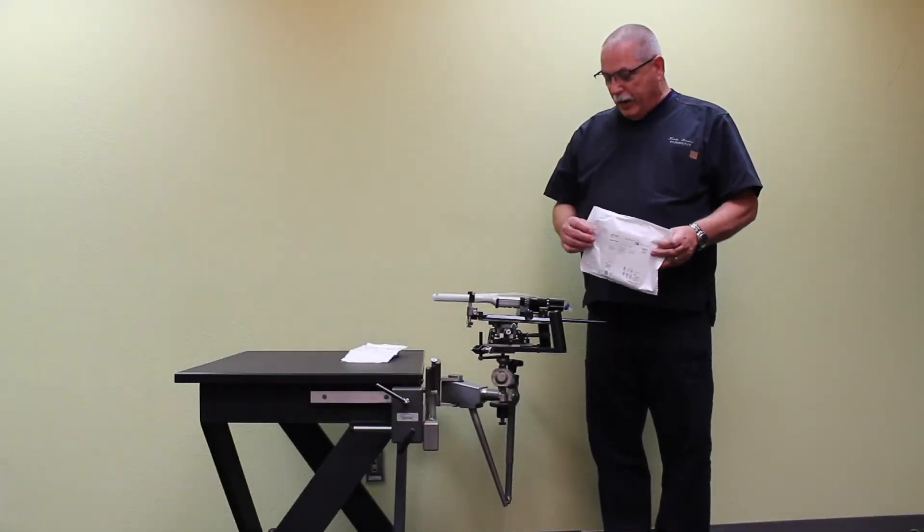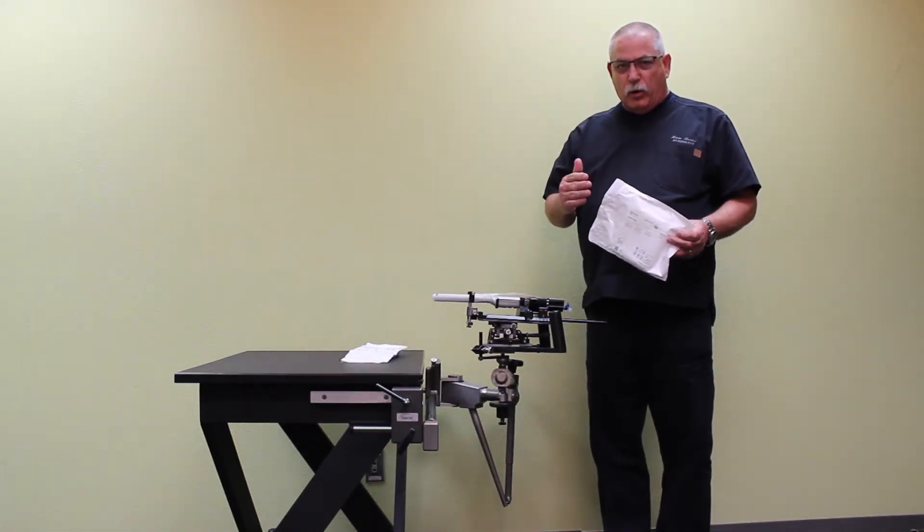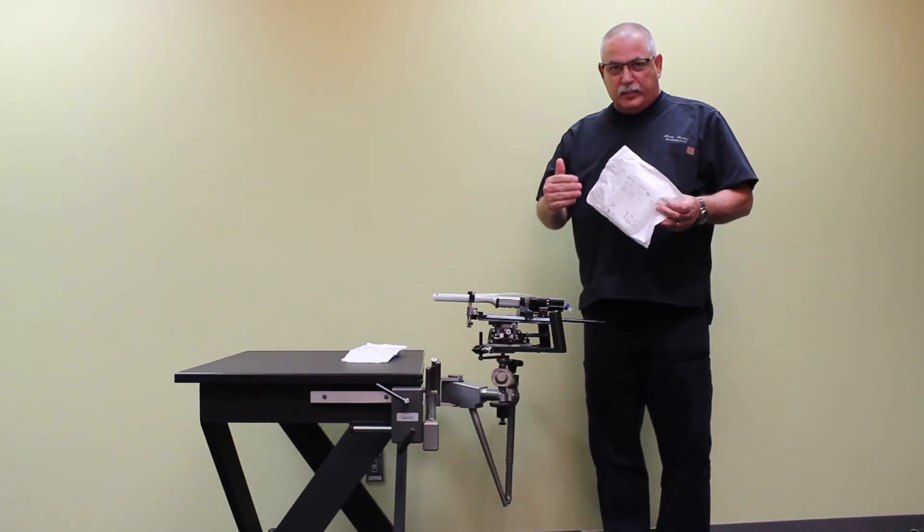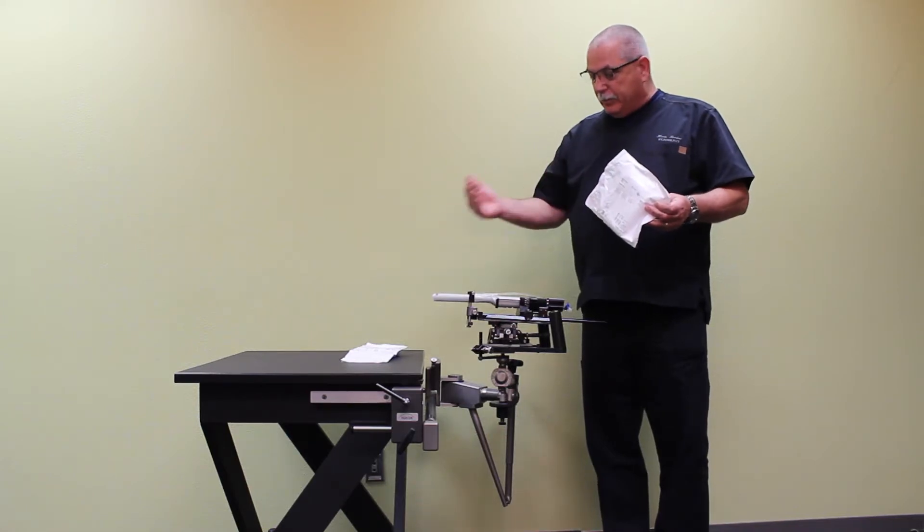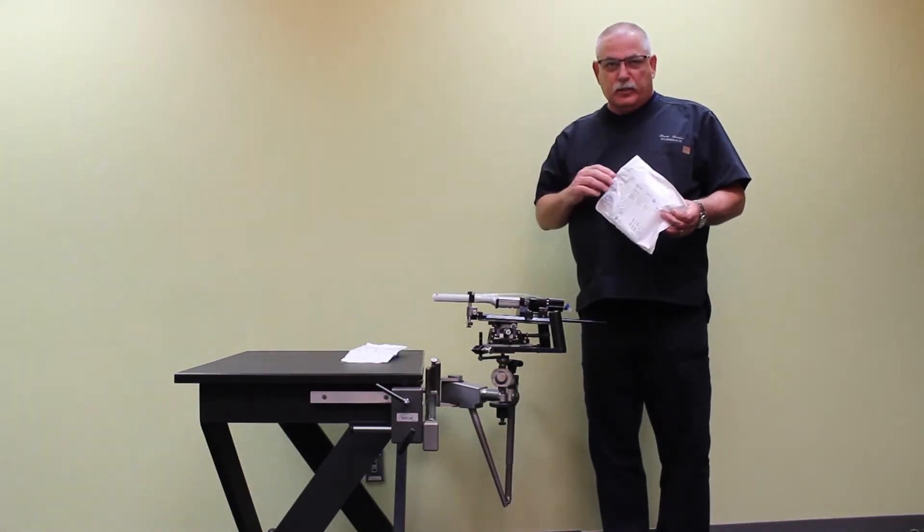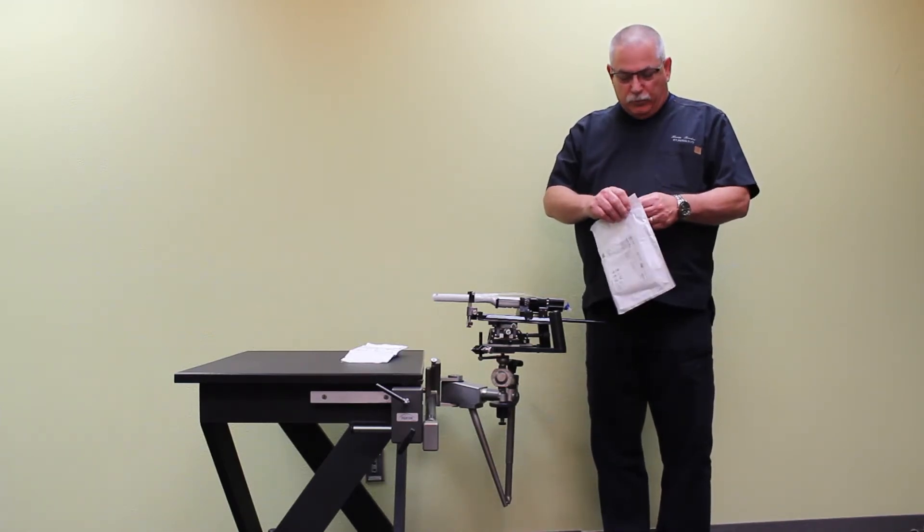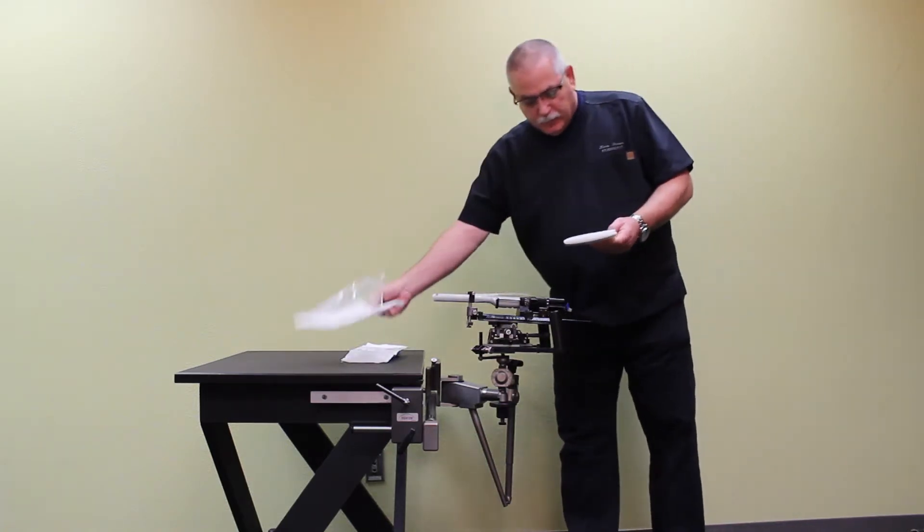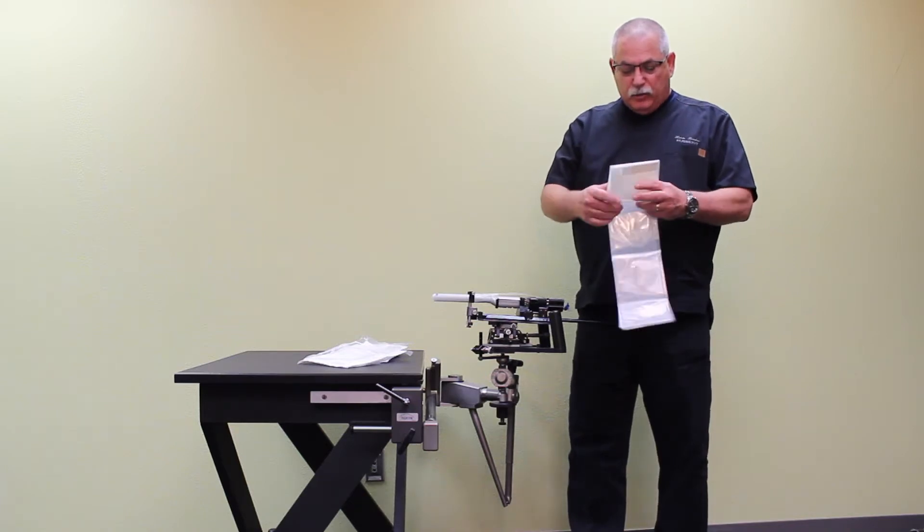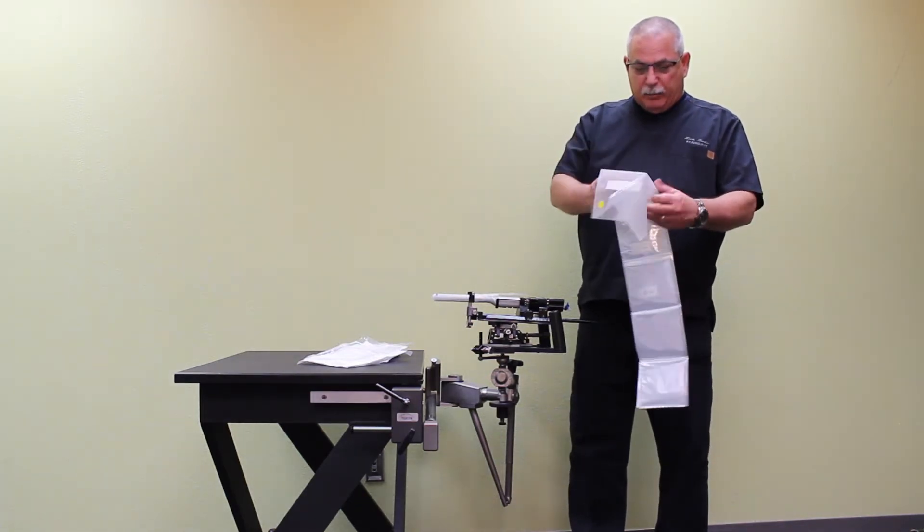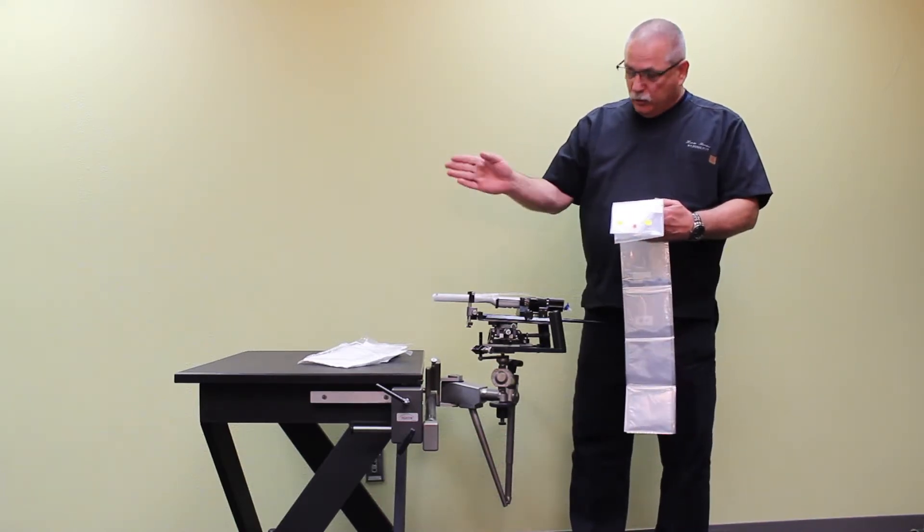Next I'll show you how to drape your classic stepper and your micro touch stabilizer. It's important to note at this point that in a real procedure you would be sterile. This setup at this point forward would be sterile. The person opening the drape and the grid would not be sterile, but they can be dropped onto a sterile tray. First, we're going to open the drape itself, and you'll notice it's labeled top, so I'll want to keep that part up and towards the top of the stepper and stabilizer. You'll also notice some yellow dots and an arrow. The arrow points towards the patient.